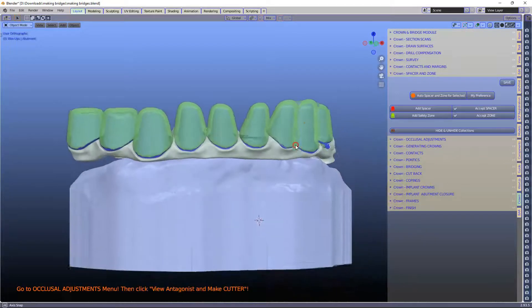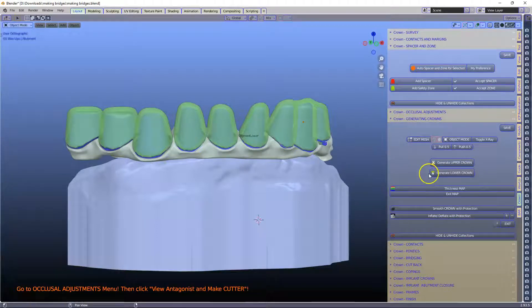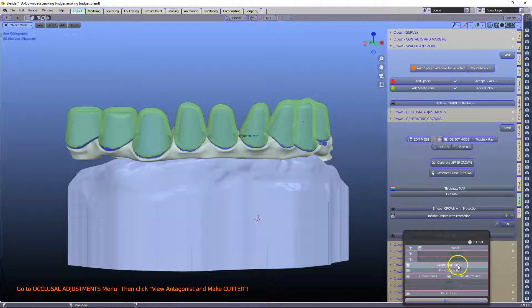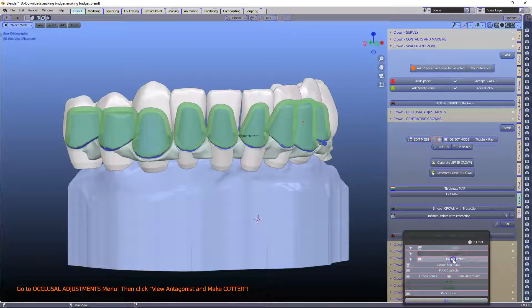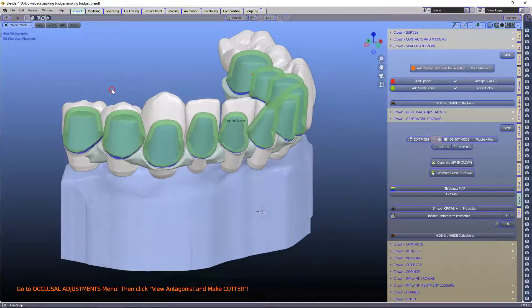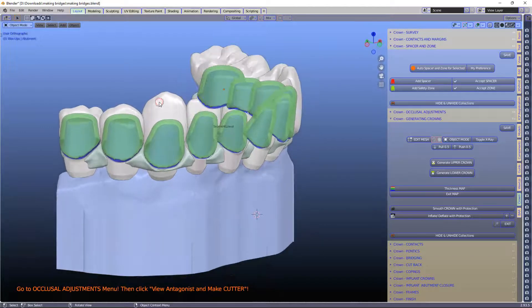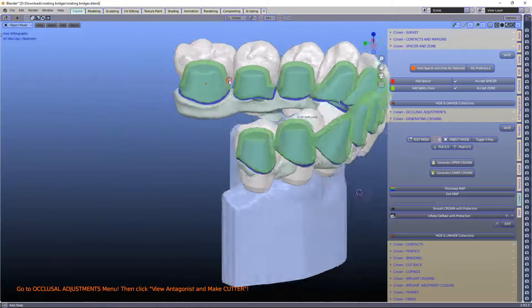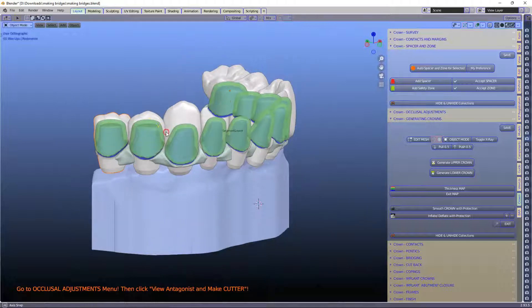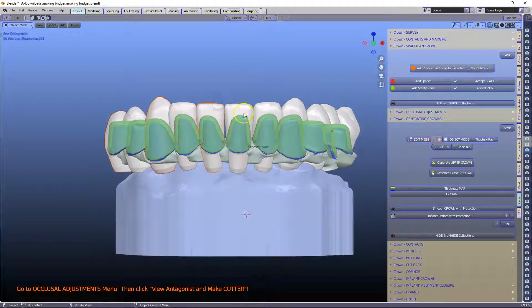Okay, so this works now. It got stuck and went into edit mode beforehand, but it seems to be okay now. What we're going to do is generate crowns. Let's just look at the restorations — the green is in front of us, so I'll just leave it. The teeth have been sort of okay re-meshed.